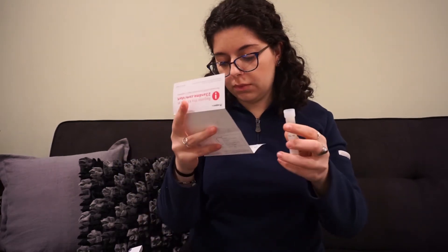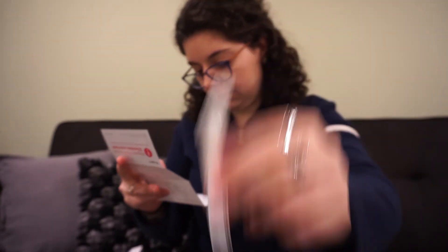So now that is put to the side. I screw this part on tightly — just a regular little piece of plastic screw. And now that it's screwed on I just have to shake it. It says for five seconds. It's probably mixing the liquid fully. I can't imagine it's not going to shake for five seconds in the mail though.